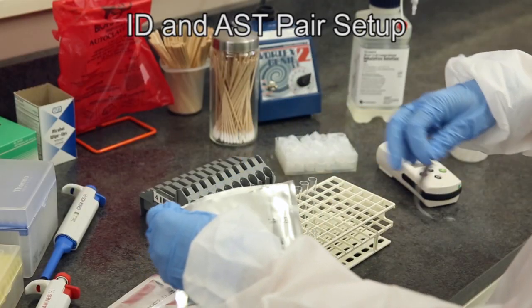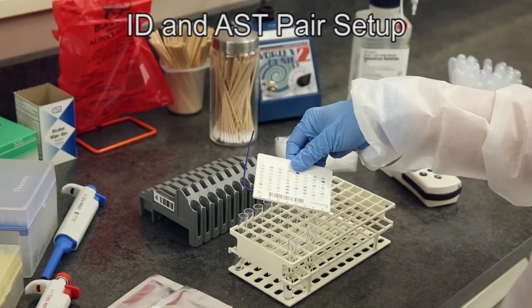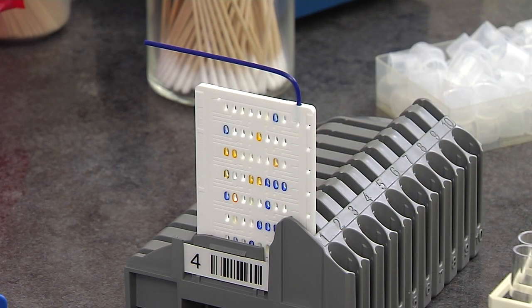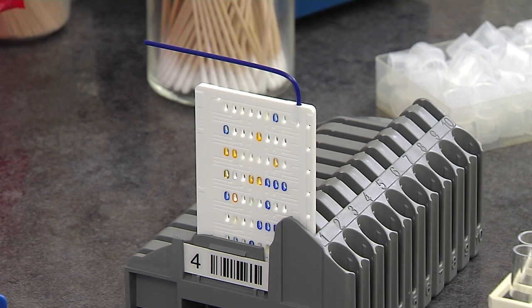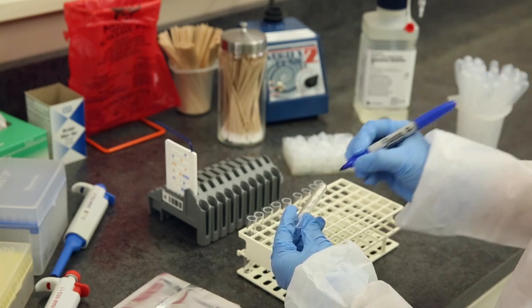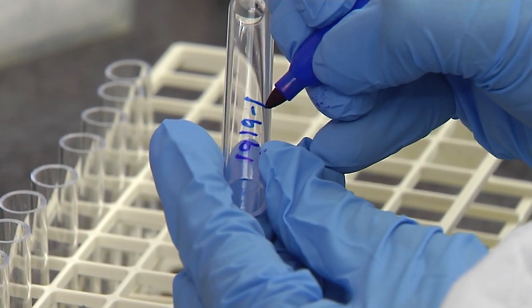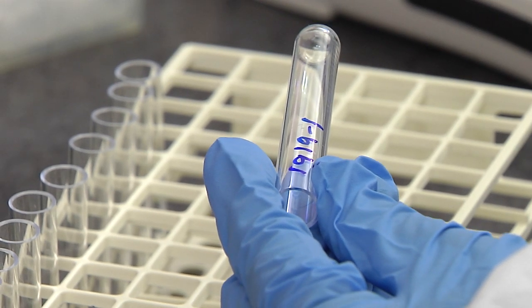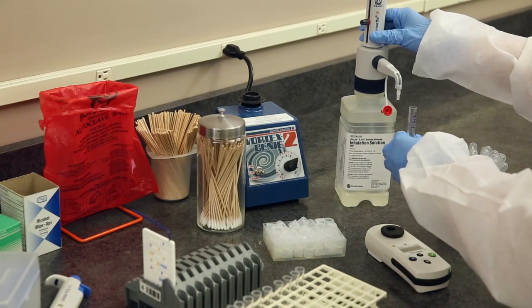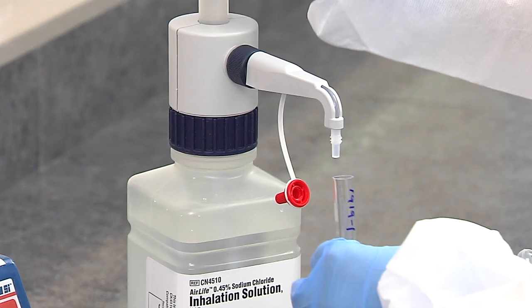Remove the ID test card, now warm to room temperature, from its foil pouch and place in the cassette with the transfer tube pointing away from you in order to minimize accidentally touching the transfer tube. If required by your standard operating procedure, label the top third of a 12 x 75 mm clear polystyrene tube with patient identification. Using the dispense set, dispense 3.0 mL of saline into the tube.